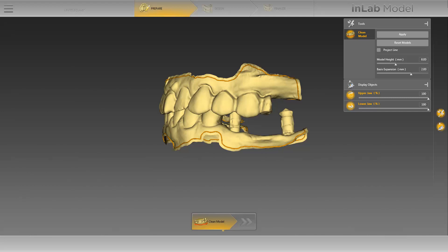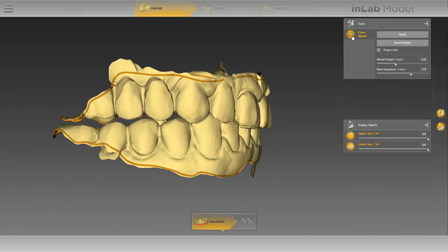To adjust the line, you can deactivate and activate the upper and lower jaw at any time. The procedure for correcting the cut line is similar to the procedure for adjusting the margin line. Start by double-clicking on a point on the line, then single-click until you reach the point where you want to reconnect with the existing line or where you want to finish the correction. You can complete the correction by double-clicking again. In our case, we have already corrected the cut line of the upper jaw and lower jaw, and we can see here the end result.